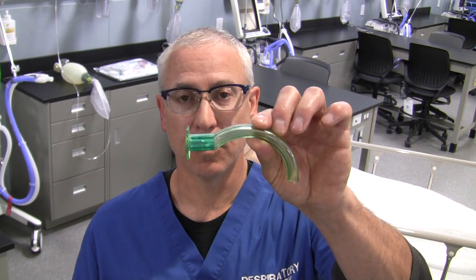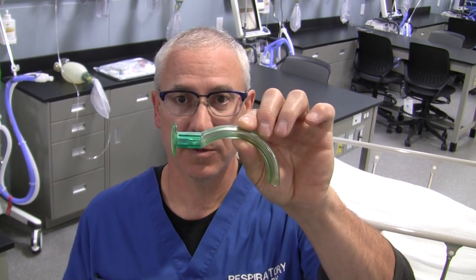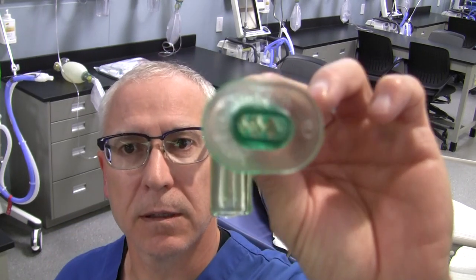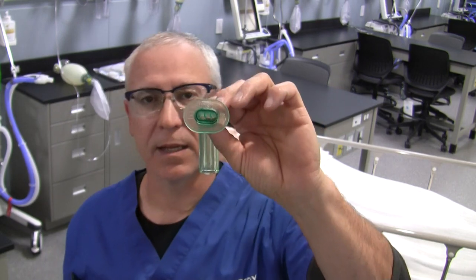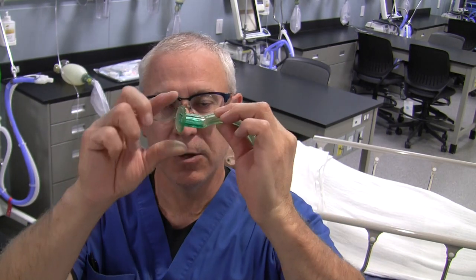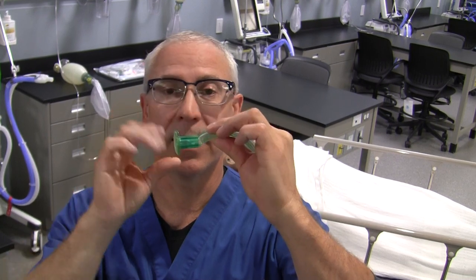Let's look at the oropharyngeal airway or OPA. There are a few parts you should be familiar with. The first part is called the flange — that's this wide part right here. The flange is used to prevent the airway from slipping further into the patient's airway. It usually rests against the lips or the patient's teeth depending on the mouth opening.